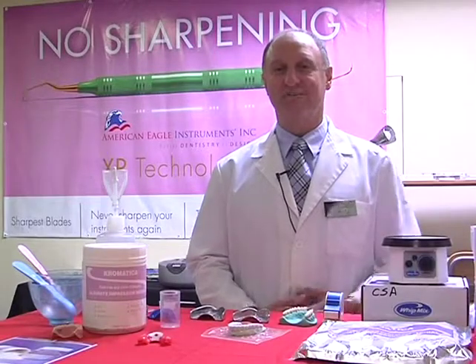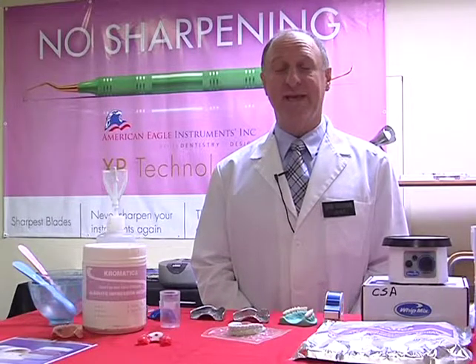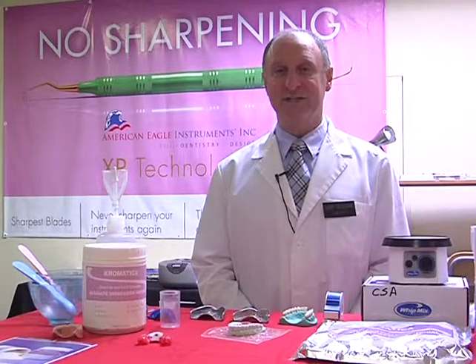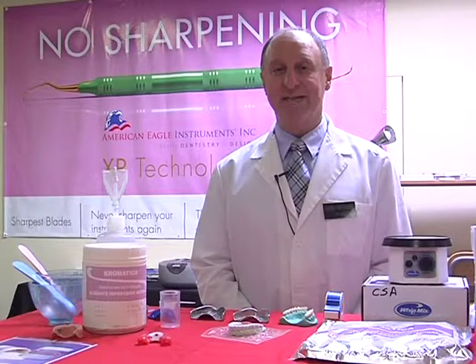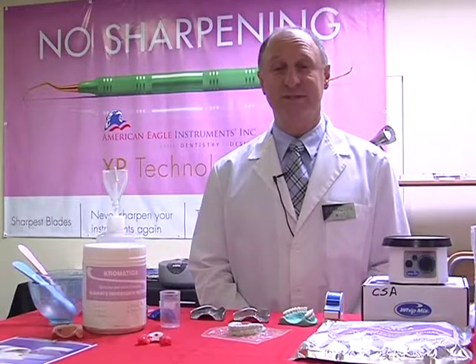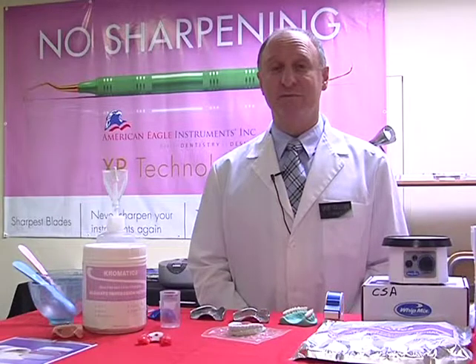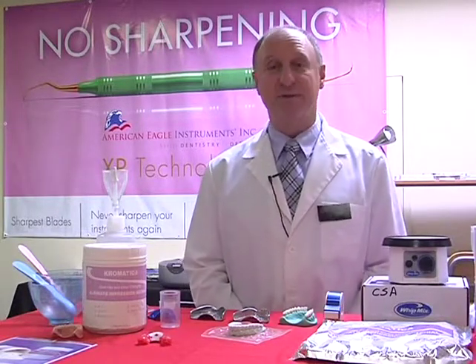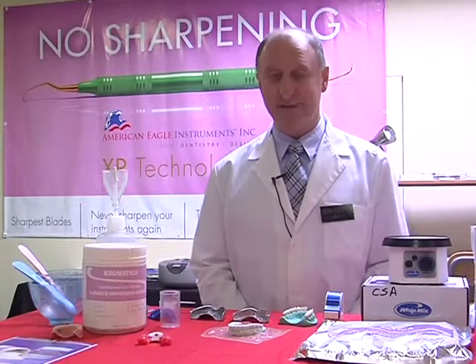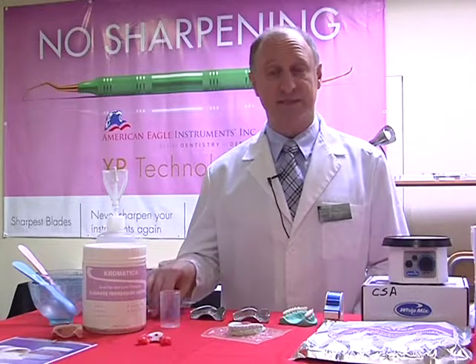I'm David Goldshaw. I'm the president of Oshaw Dental Productions, and here we talk about and educate on dental materials. I'd like to be able to explain to you how we're going to look at and work with impression materials, in this case, alginates. Now, it's very important to first off look at our types of impression trays. There's a variety of impression trays we can choose, and in this case we're going to look at the plastic trays versus the metal trays.